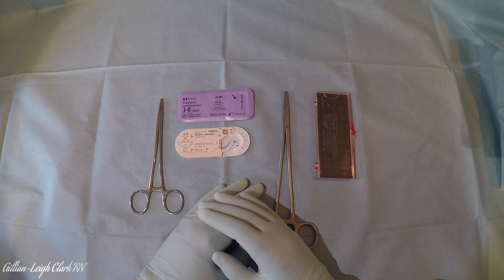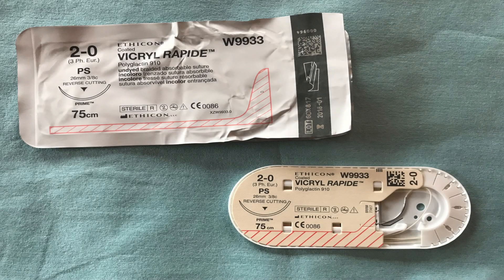If you're using a very small needle then you would need to use a smaller needle holder. If you were using a small needle on a large needle holder you would lose some of the surface area, so you would have less chance of sewing effectively. For example, I have here a 2-0 needle and suture and I'm going to put it onto this Mayo needle holder.